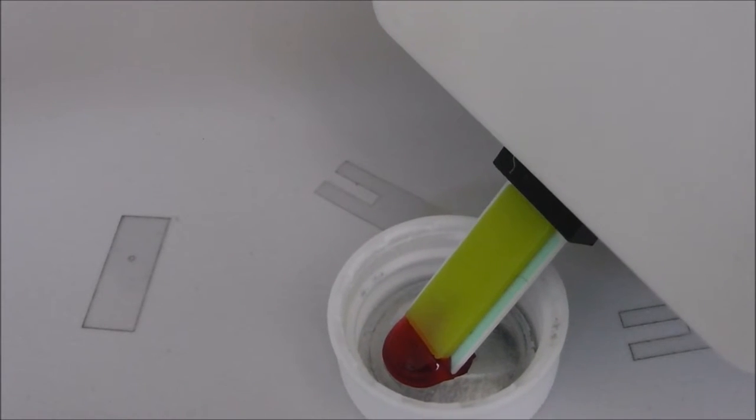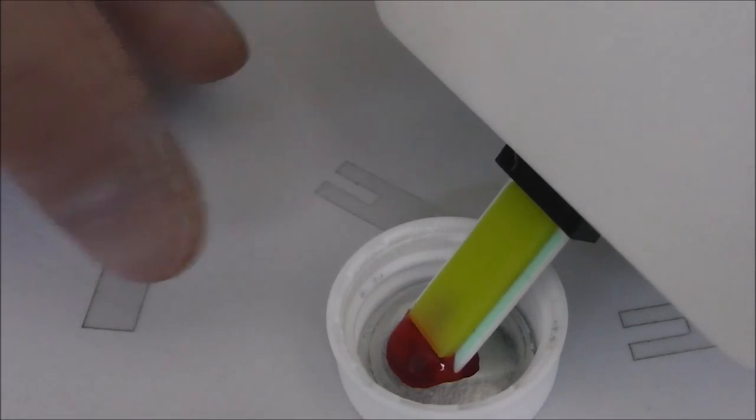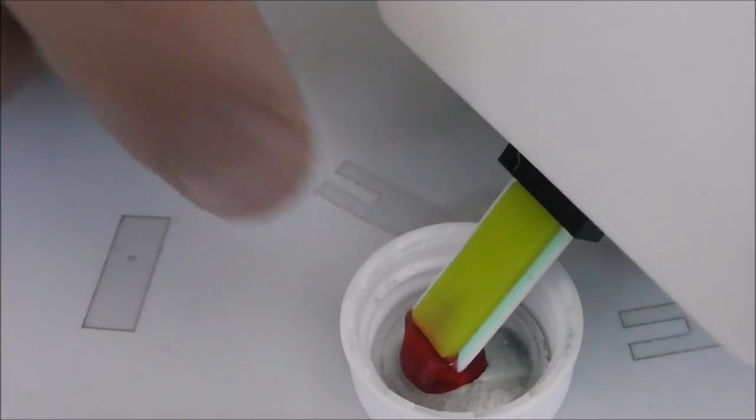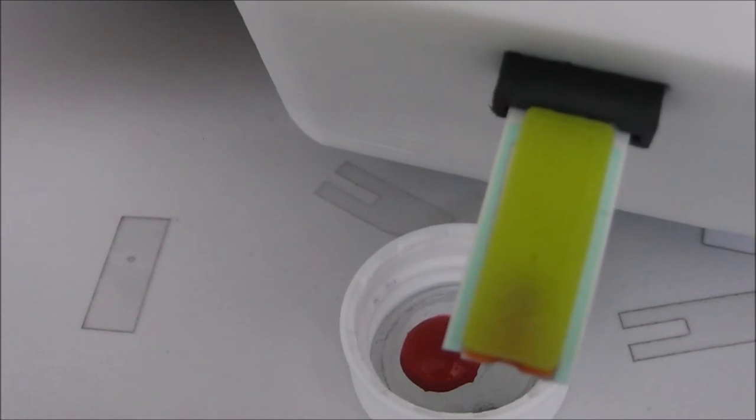And I can actually see the dark shadow effectively coming up that capillary. I'm going to try and get my finger but there's basically a dark shadow coming up here. That's it, yeah, you can see it. You can see now the food coloring is all in there.